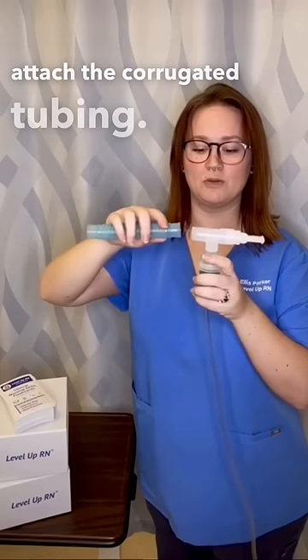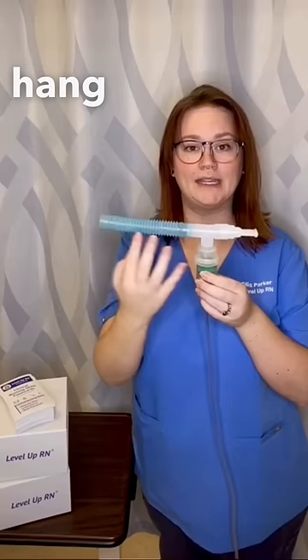This allows the medication, once the air is flowing, to be aerosolized and kind of hang out in that corrugated tubing so that the patient can breathe it in at their own rate.